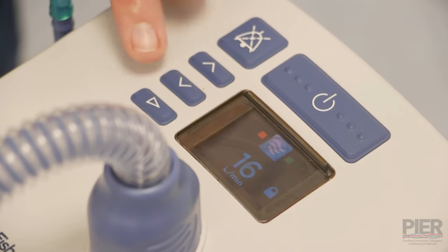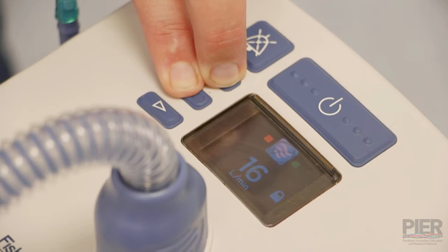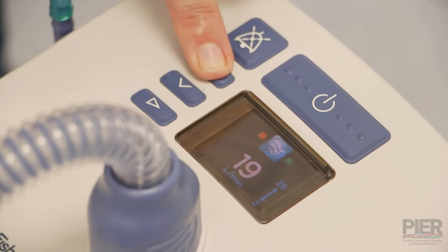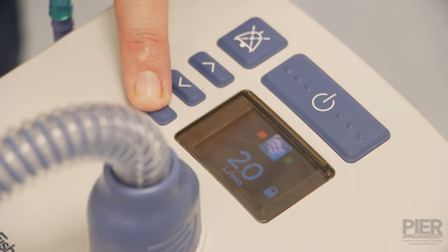The blue one is the flow. Again, push the up and down arrows to unlock. And then you can scroll up to set the flow appropriate for your patient and appropriate for the size of the prongs. Press play to accept.